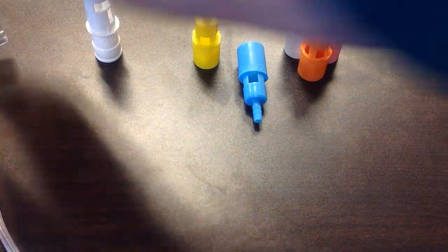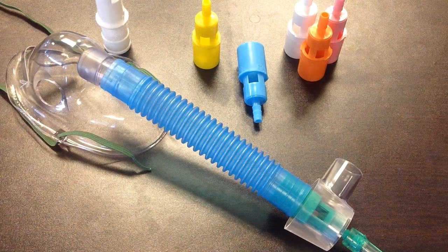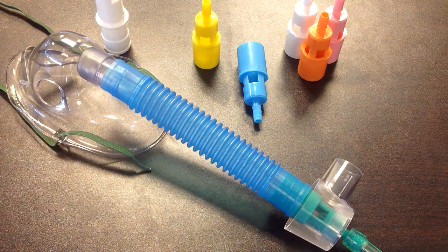This is called a high flow system. High flow systems are designed to meet or exceed the patient's inspiratory flow demands.